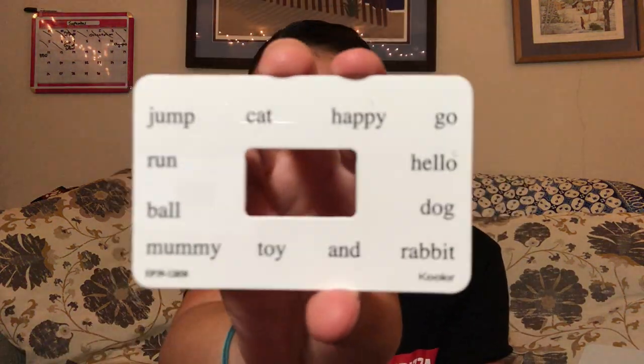Someone's going to have a pink handle — so nice. I got one of these things that looks like a spring. I really can't wait to find out what all this stuff does later and look back at this video. It also comes with a little case that says Keeler on it — no handle on it, which I think there should be. Another spring thing with a bar. And then it's a little bag of cards that say things — I'm guessing this is like cards to see if people can read certain words or something. There's also a second USB drive in this package — what am I going to need two USB drives for? Finally opening the briefcase.